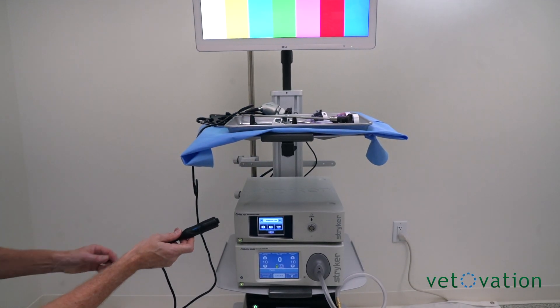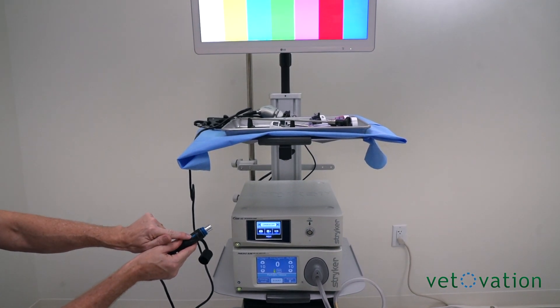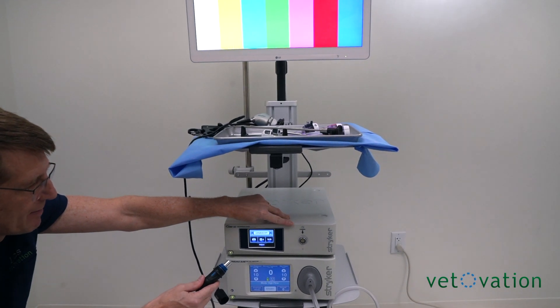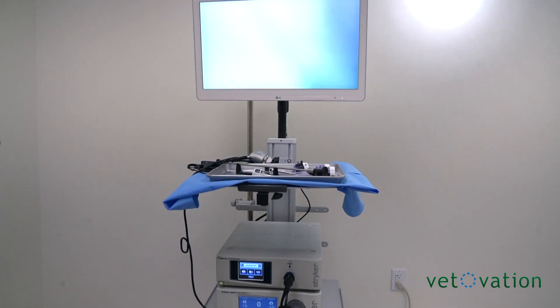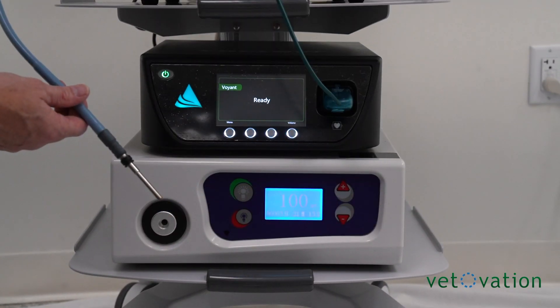Pass off your camera cable, unscrew the cap, and look for the blue arrow to be up. Plug it into where your camera says 'camera' with an arrow pointing down. As you plug that in, your color bars will disappear and you'll have a clear picture of whatever your camera is looking at.